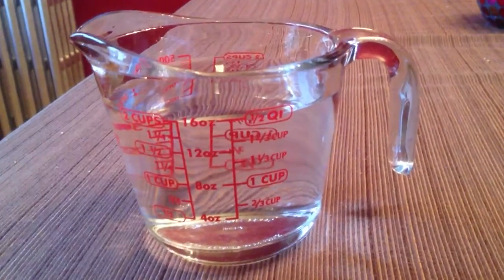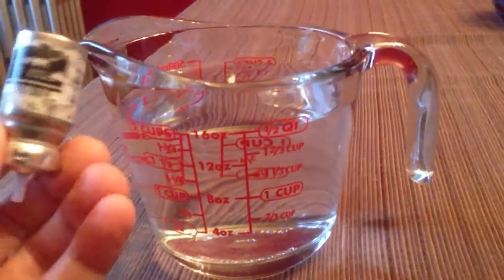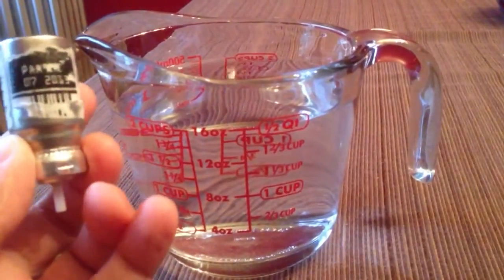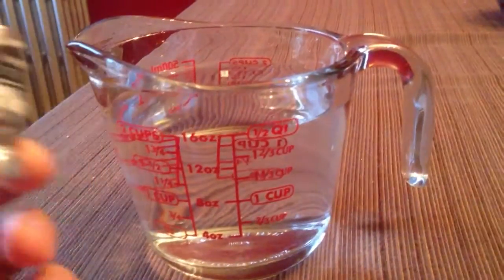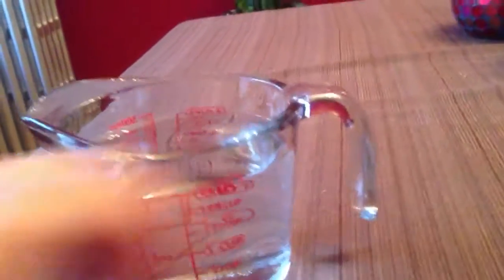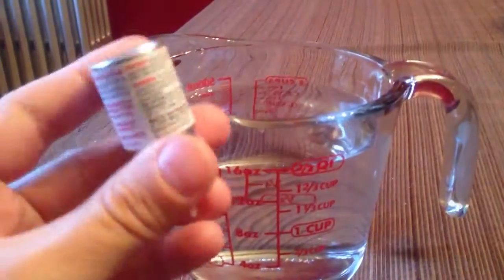So I'm curious because I've got this old albuterol canister I've had for a while. I don't know how much is in that, and I have my backup which I have not used.